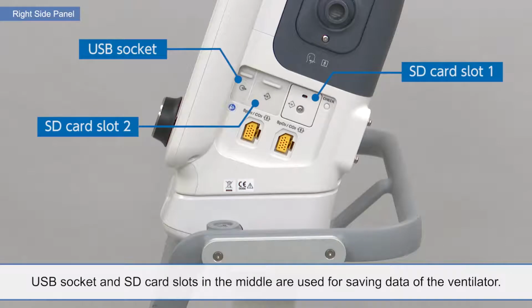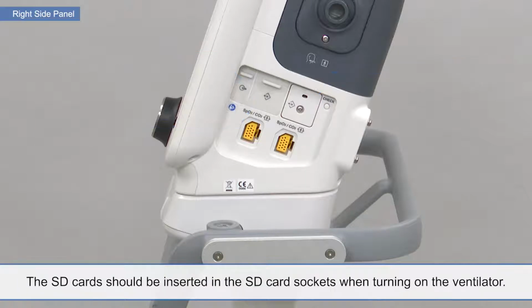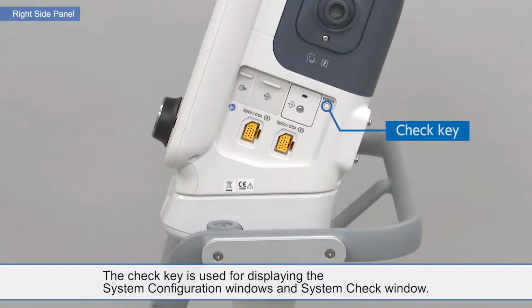The USB socket and SD card slots in the middle are used for saving data of the ventilator. Slot 1 is used for saving monitoring data, and slot 2 is used for saving the currently displayed window, numeric data and event history, and for upgrading software. The SD cards should be inserted in the SD card sockets when turning on the ventilator. The check key is used for displaying the system configuration windows and system check window.